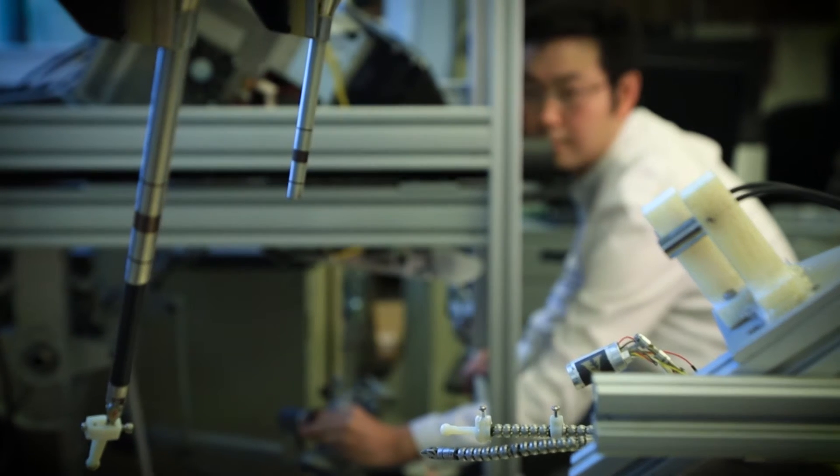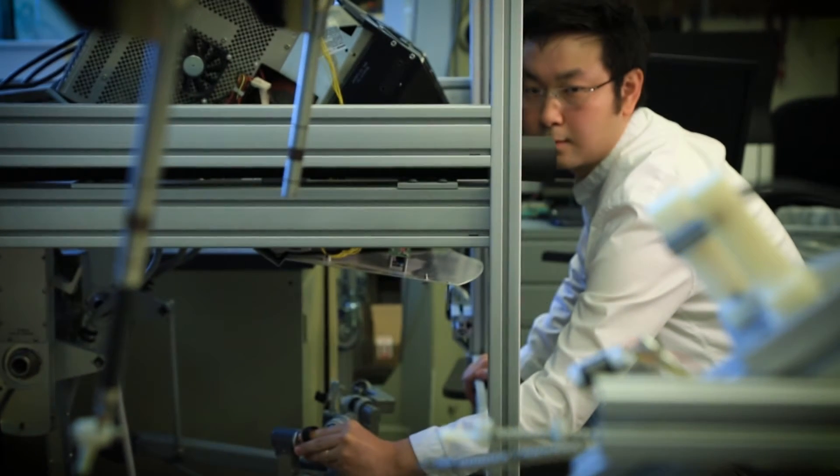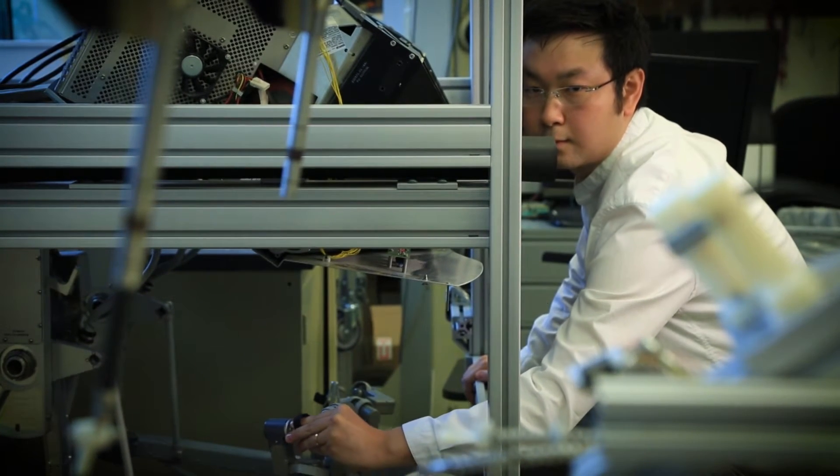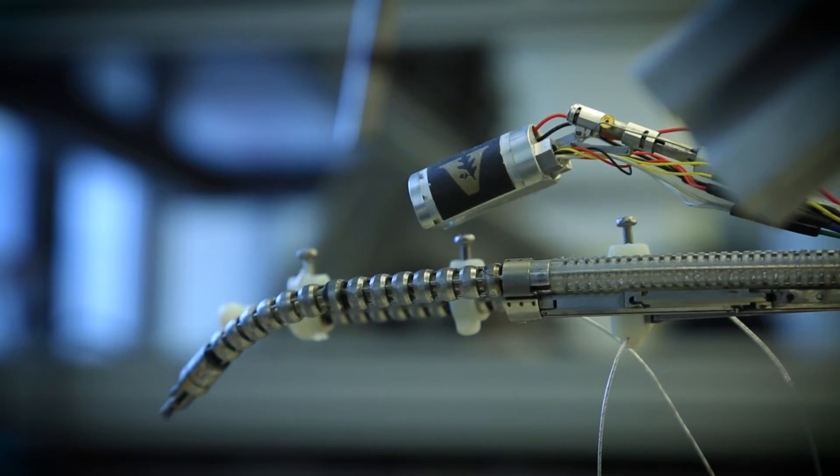How is this unique? All devices that exist right now on the market essentially are motion replicators. If I move my hand this way, the robot moves the similar way on the other side inside the patient. Often doctors can only see the space around the tip of their surgical tool, like a horse with blinders on.